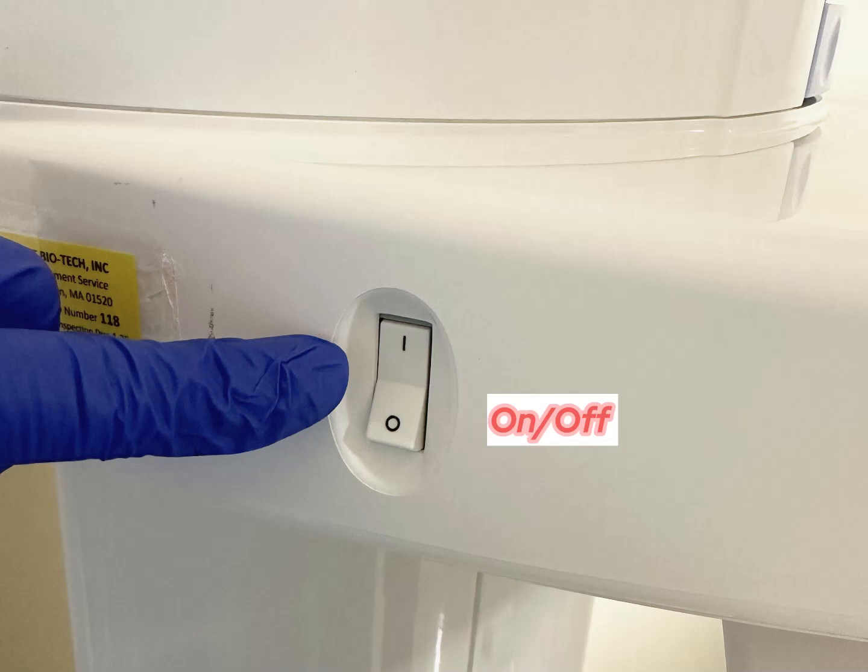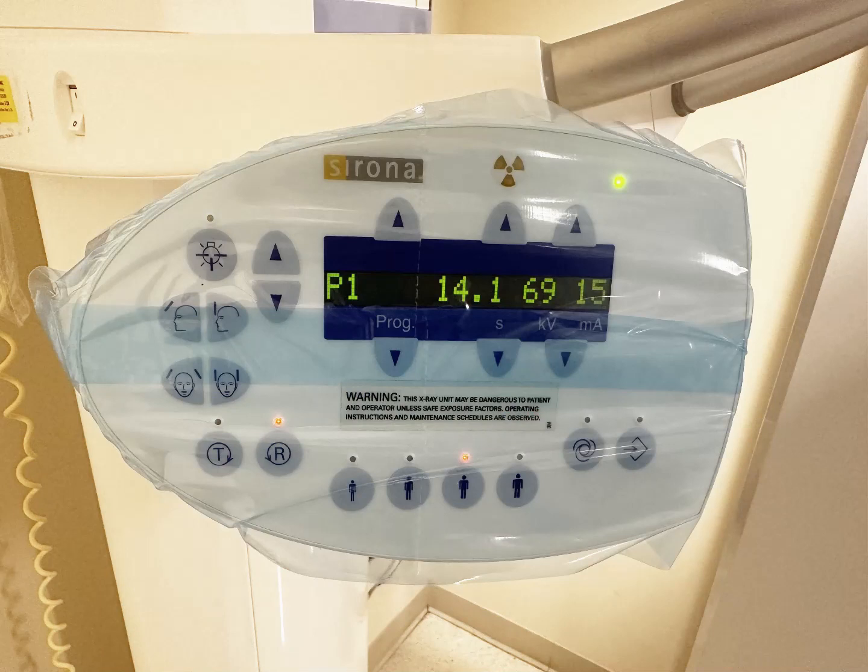On the picture, these are the on and off buttons, to turn the machine on and off before and after using it. This is the control panel. The P1 that is already set up here is the standard mode. We also have a few other modes, which are P10 and PC1.